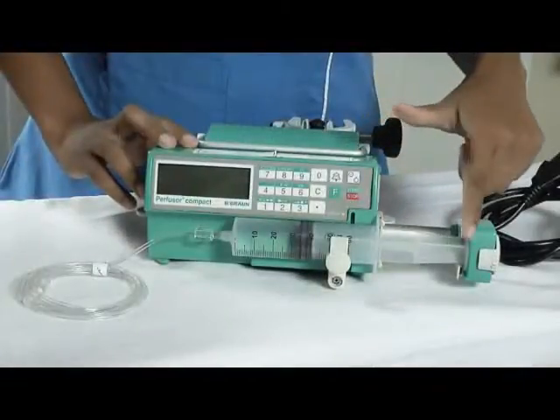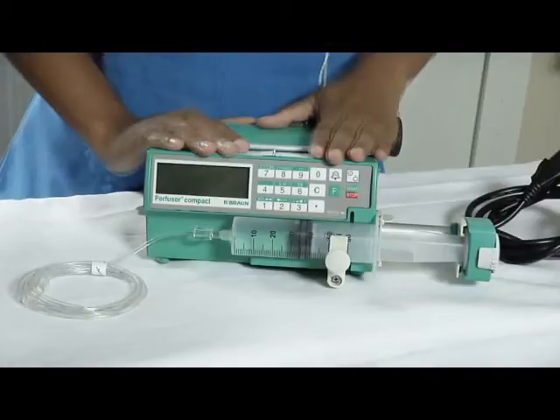This is the syringe and this is the pump, which is why this is called a syringe pump.